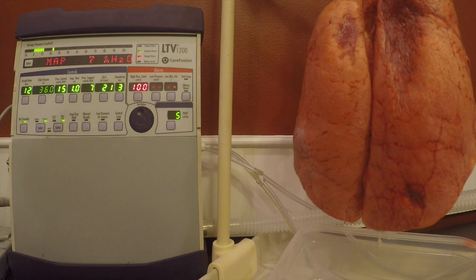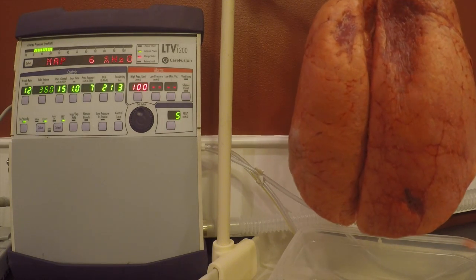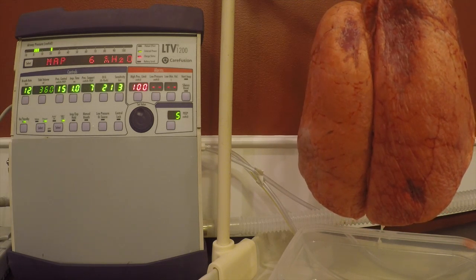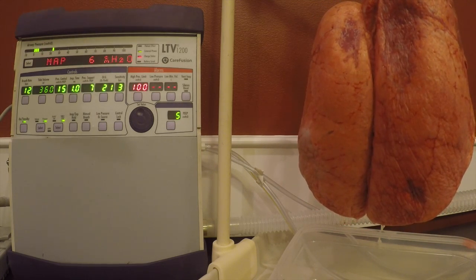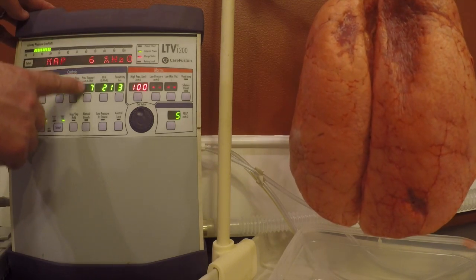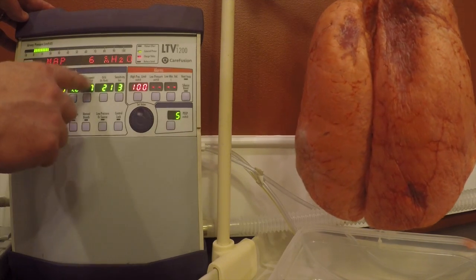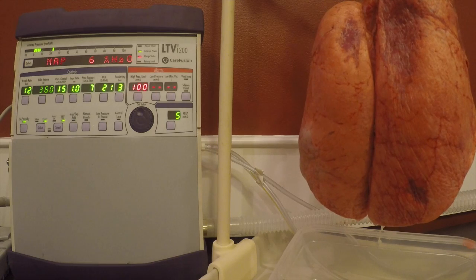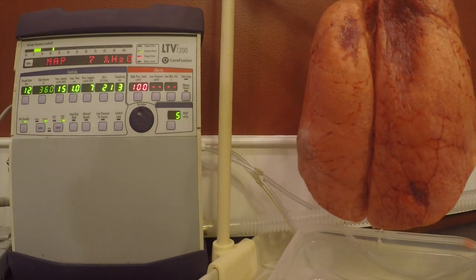So again, remember that this ventilator is additive. It's whatever is over PEEP. If we wanted to start out with an IPAP of 12 and an EPAP of 5, we just take our PEEP, our EPAP, subtract that from our IPAP number, and that's what we're going to put in this pressure support area. So now we have 5 plus 7 is 12. That gives us our high pressure of 12 and our EPAP of 5.